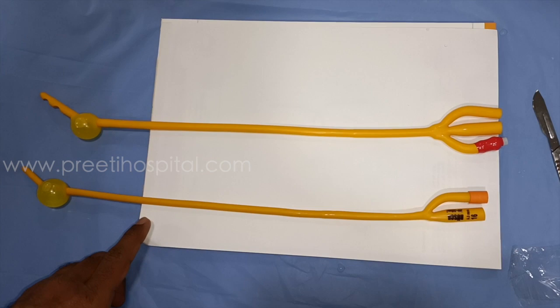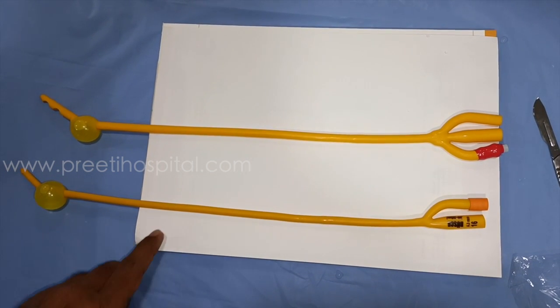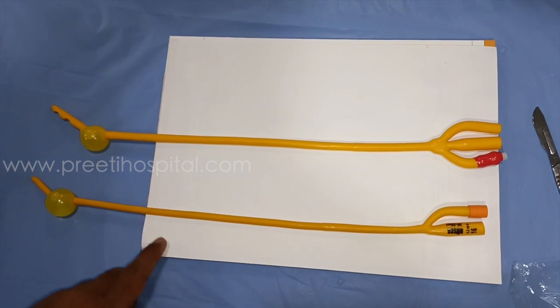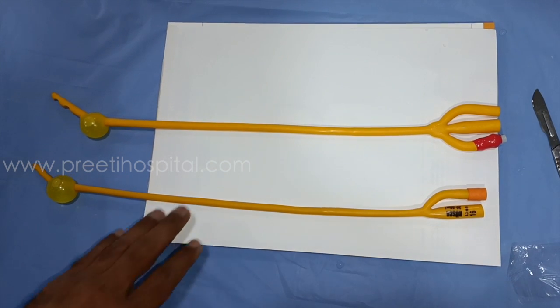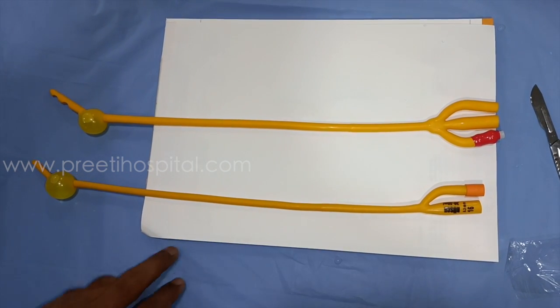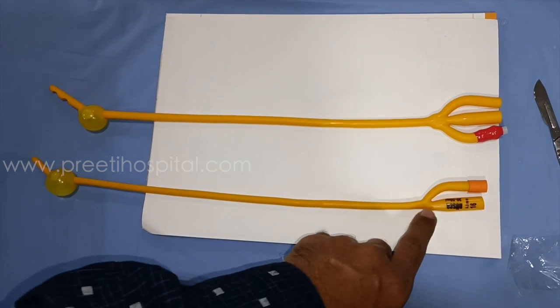Here we are sharing some facts related to the Foley's catheter. Normally when the Foley's catheter is seen, we have 3-way and 2-way. The idea of sharing this video is that the 16 French lumen is much bigger than the 3-way 22 French. How can this be?